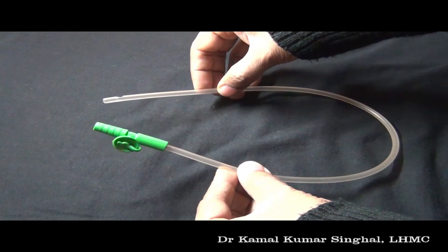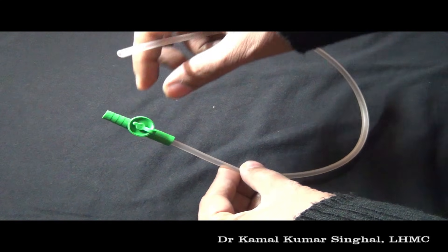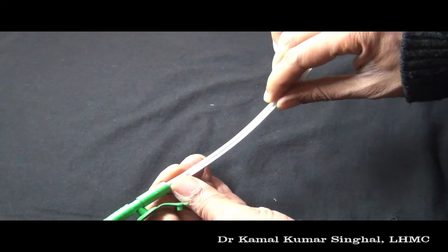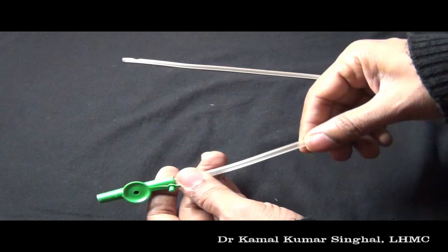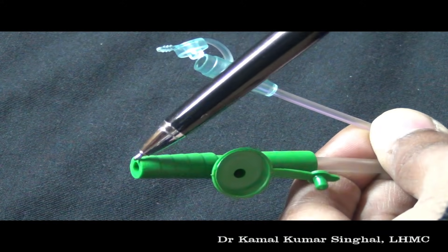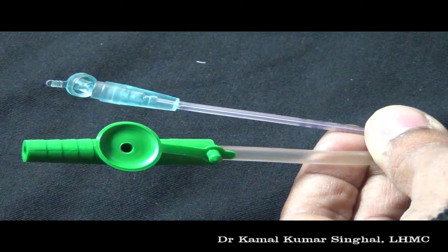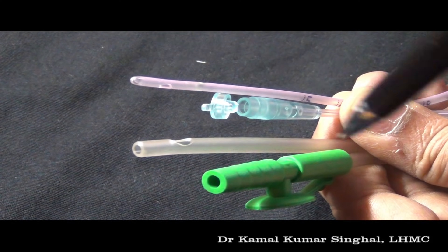This is a suction catheter. There is no cap on this end, as there is in a feeding tube. There is an opening on the side, which is to be closed while doing suction — it can also be closed with the thumb. There is no radio-opaque line on a suction catheter. The tip of the suction catheter has an opening and is not rounded like in a feeding tube. In summary: a feeding tube has a cap at this end while a suction catheter does not; a suction catheter has a side opening not present on a feeding tube; a feeding tube has a radio-opaque line which a suction catheter does not; and the suction catheter tip has an opening while the feeding tube tip is rounded and closed.